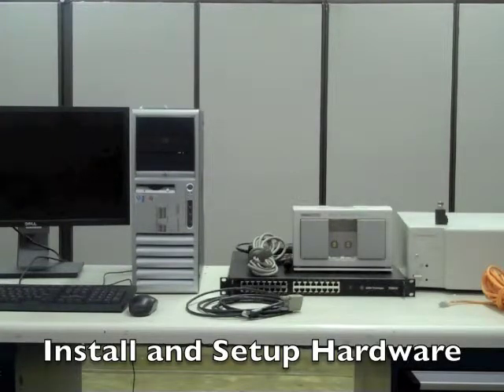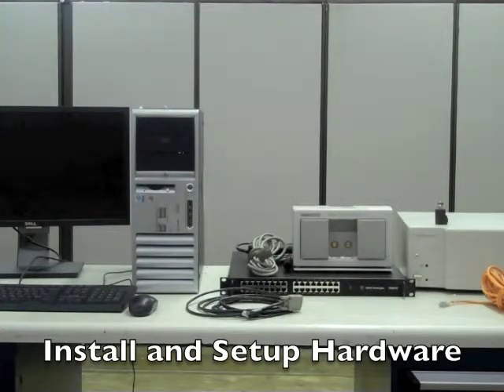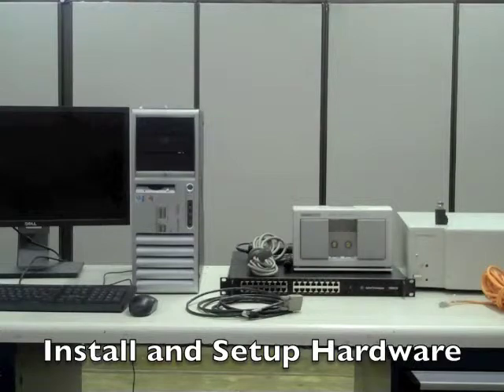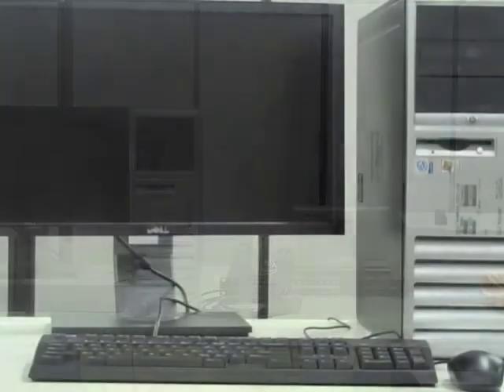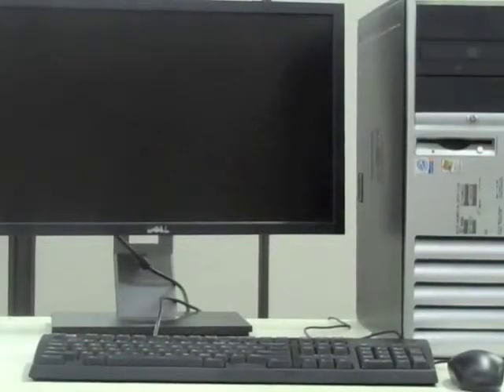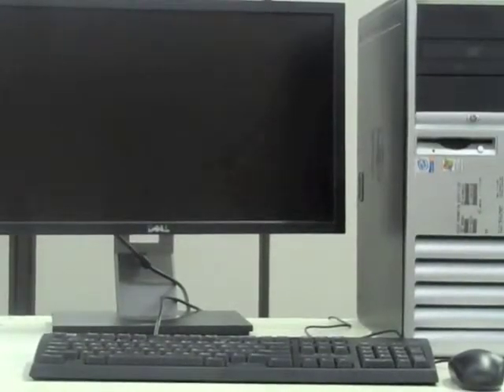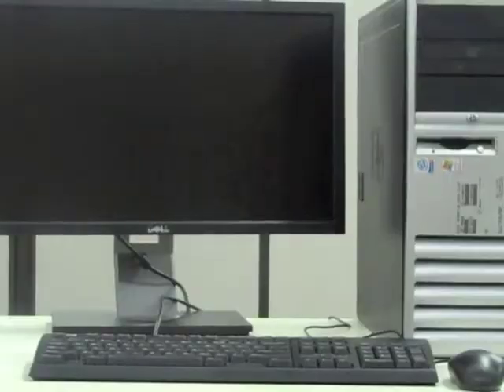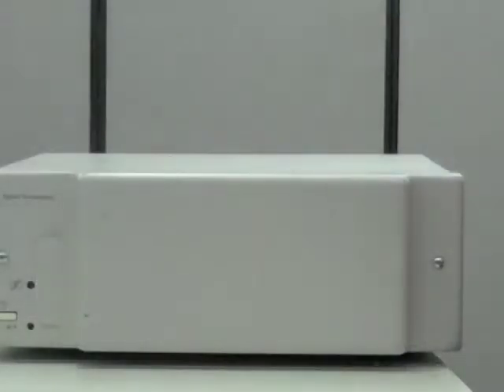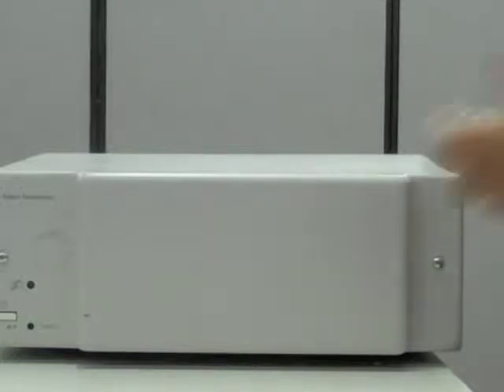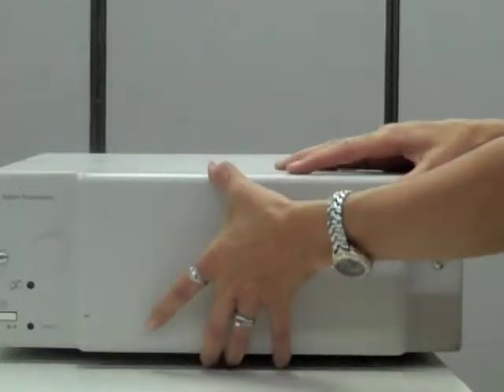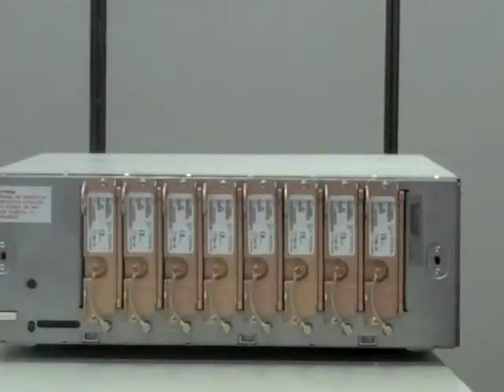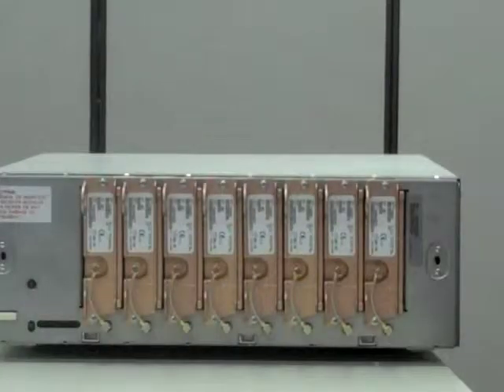The system we are using is a standalone setup consisting of the following components: a M3167 central station, a M2604A mainframe with eight M2603A receivers, a M1267A recorder module rack, rack cable, and power supply.